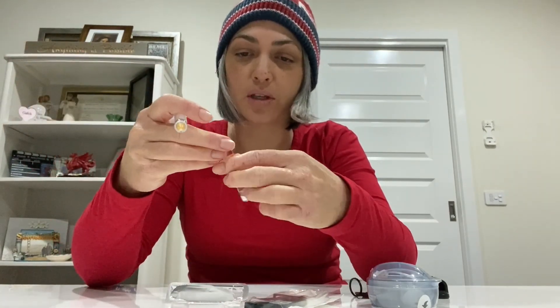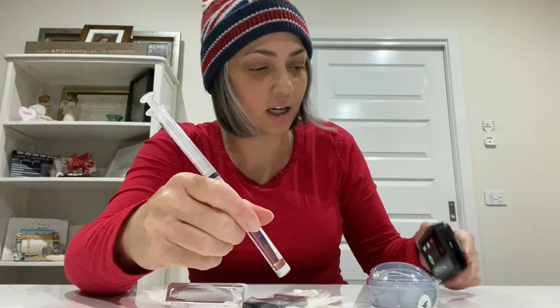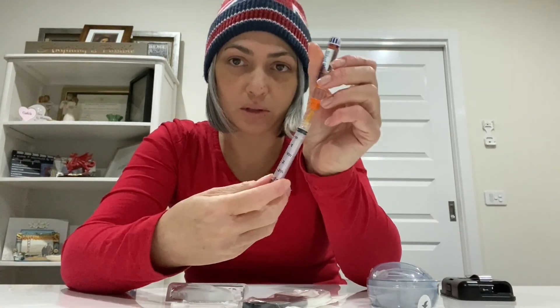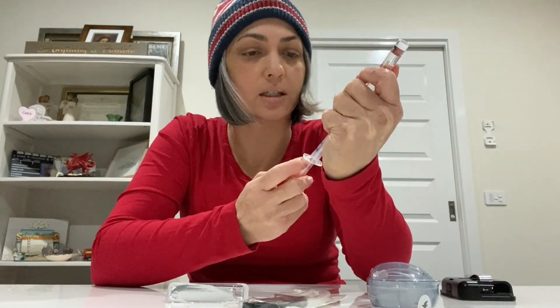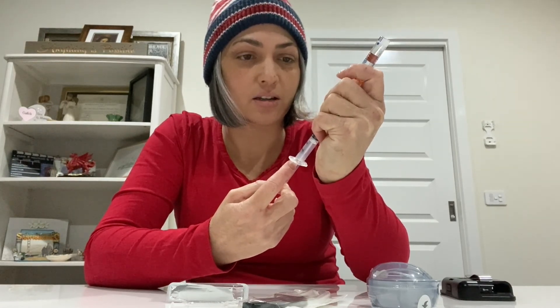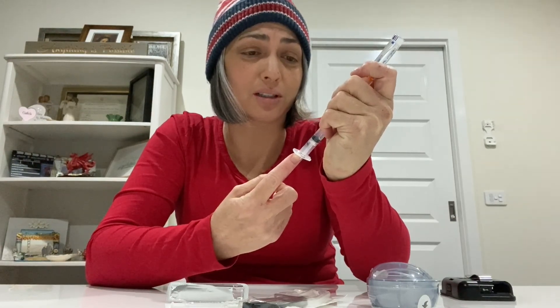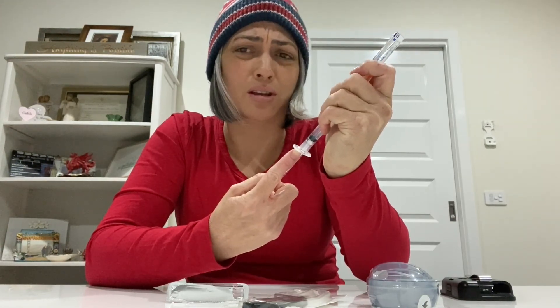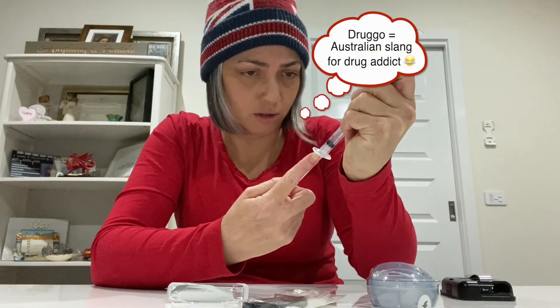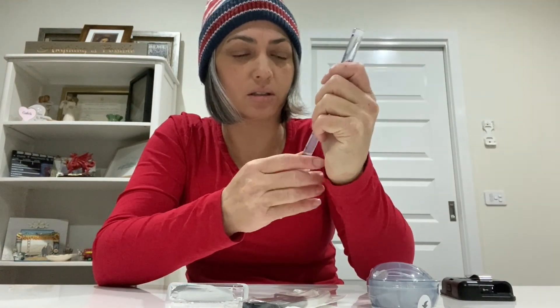I use Novo Rapid, and that's just the pump vibrating telling me there's nothing in it. I'm going to fill this syringe up to three mils. Before insulin pumps, I'd actually use syringes when I was younger — I always used to think it looked like I'm a drug user, but thankfully you don't have to do that in public anymore.